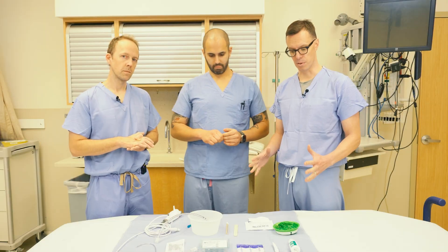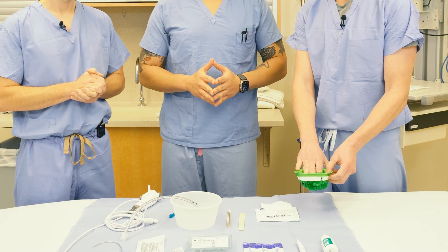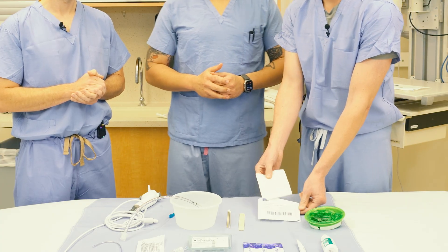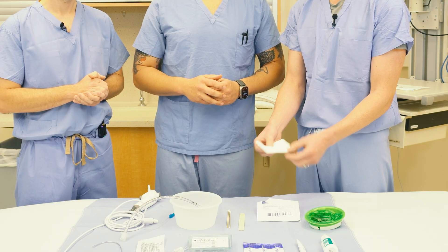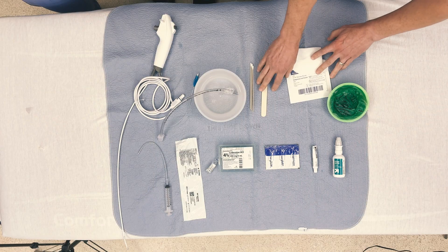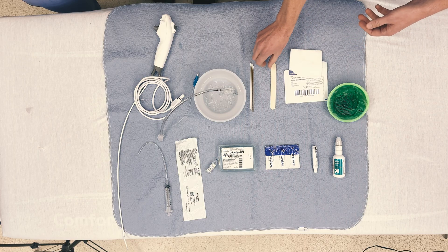It's really important that we approach this procedure with the patient awake, which means we need to pay attention to their comfort. We provide them with a basin to spit into if needed. We often use a cotton 4x4 and have either the patient or a clinician hold their tongue outside the mouth to open up more room in the posterior oropharynx. We also have a tongue depressor present to coat the tongue with lidocaine cream.